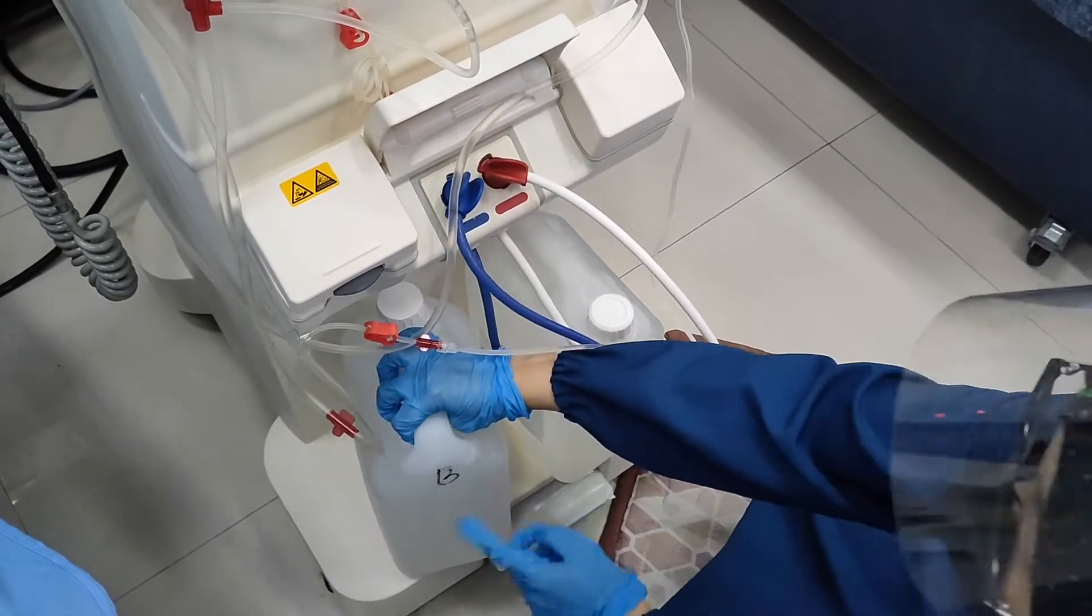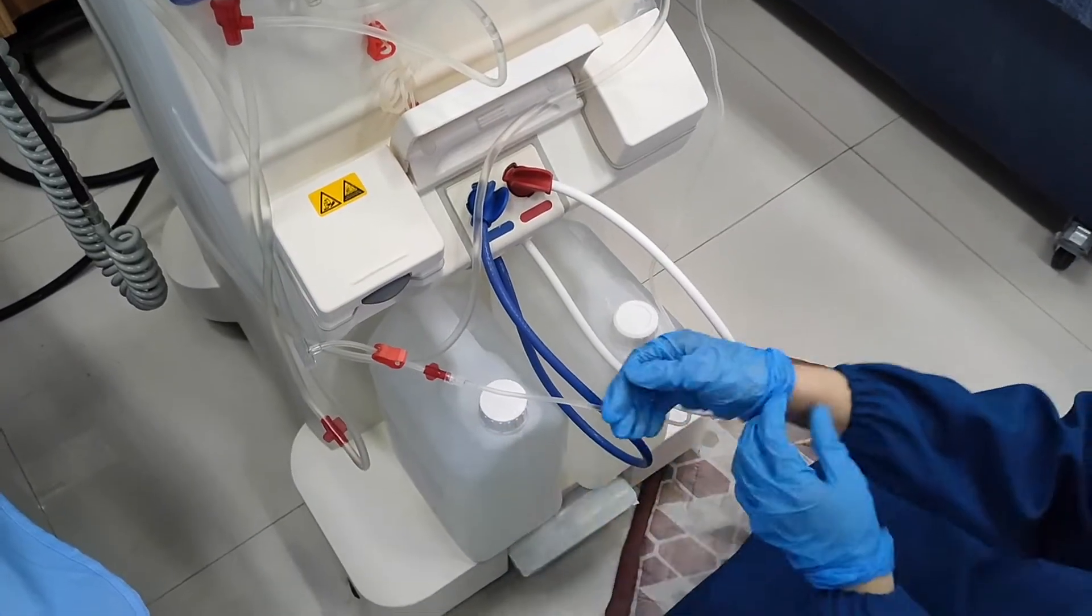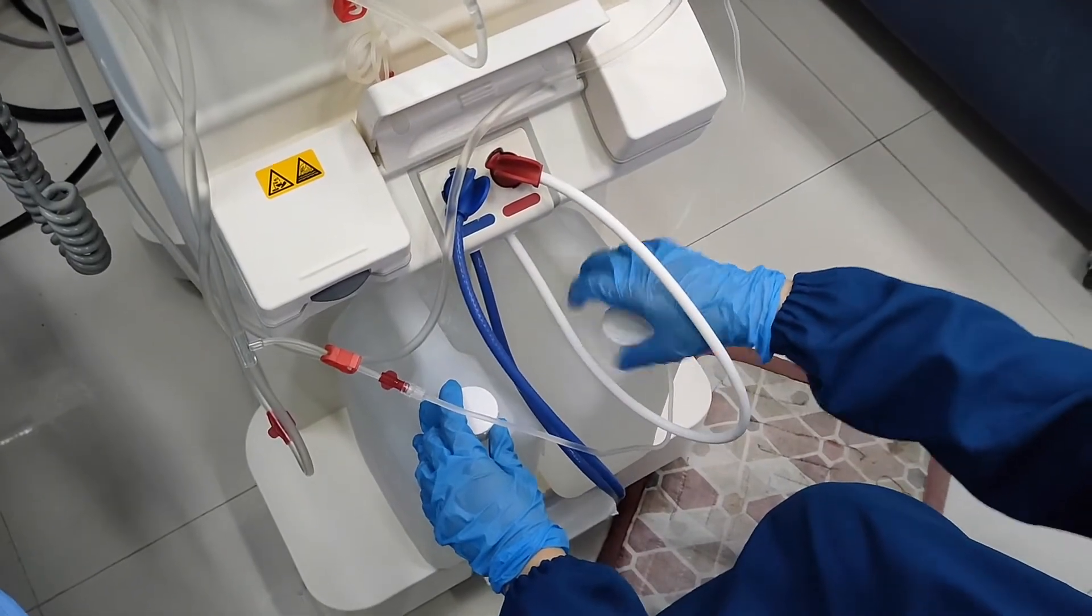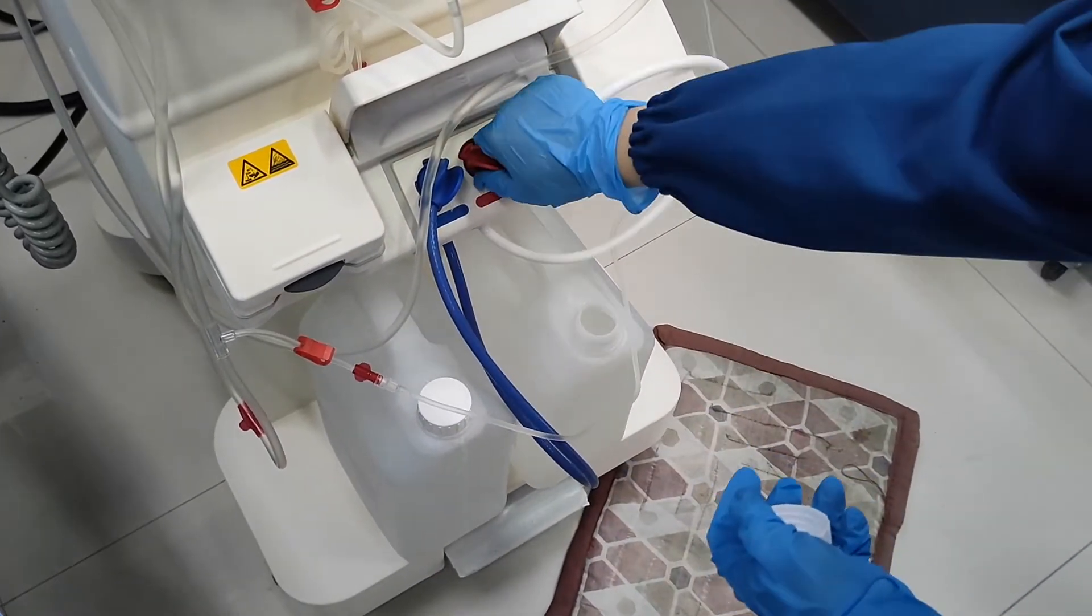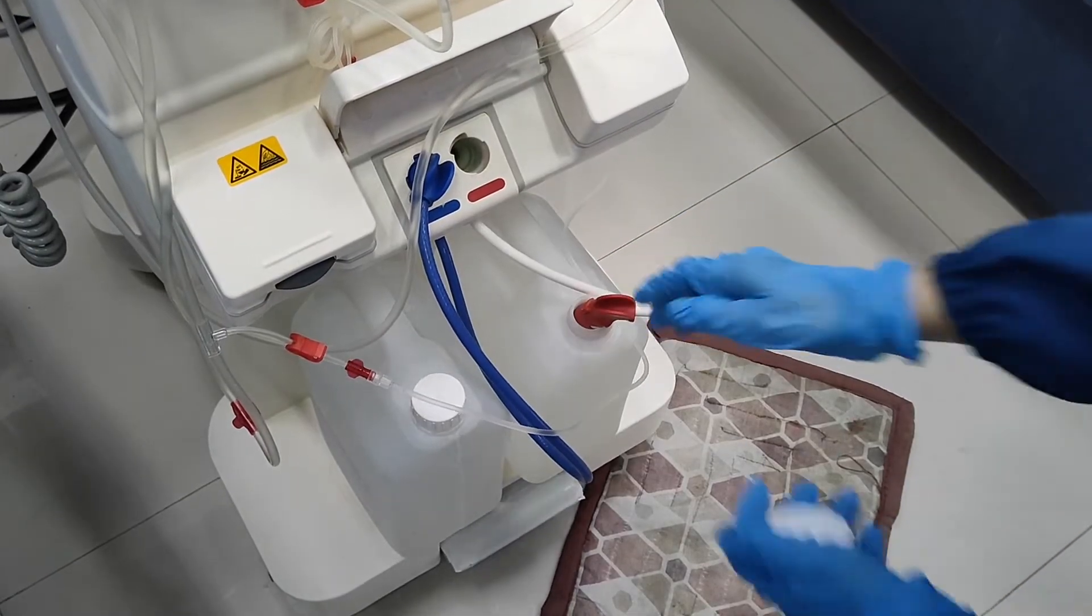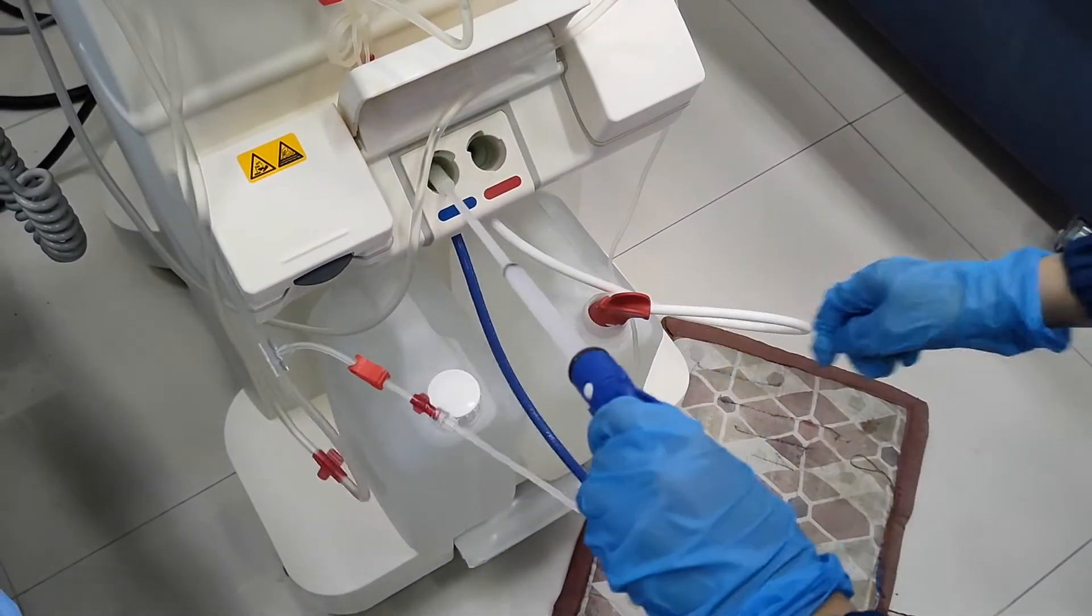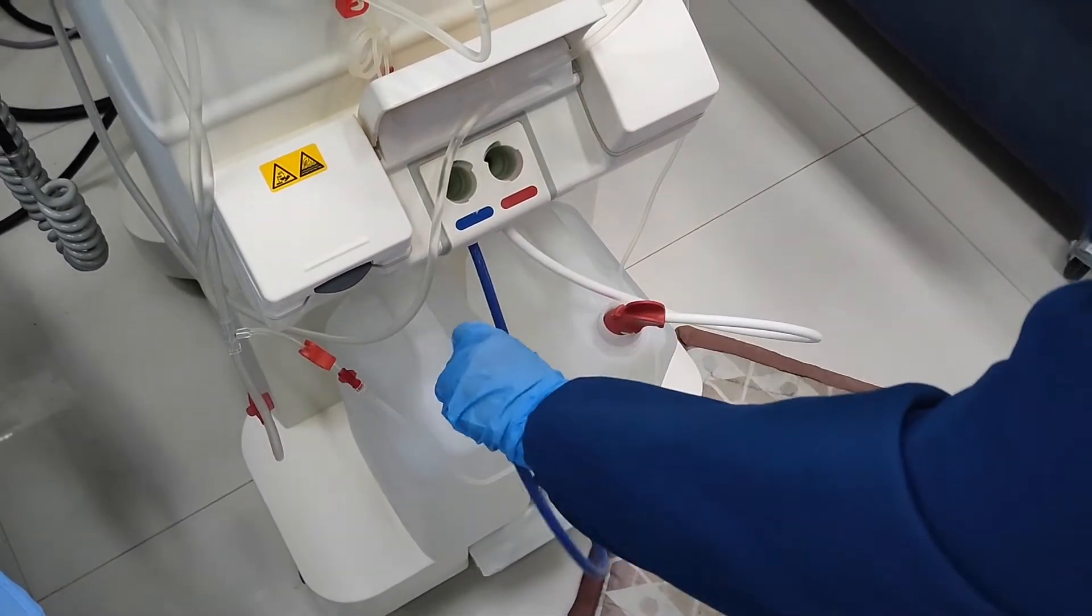Make sure that the Acid Mixture and the Bicarb Mixture are labelled correctly. The red conductivity port must be placed in the Acid Mixture. On the other hand, the blue conductivity port must be placed in the Bicarb Mixture.